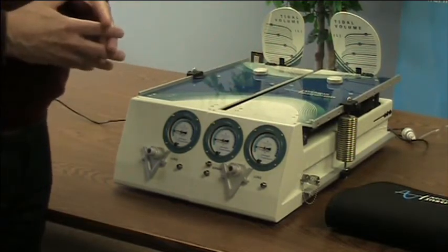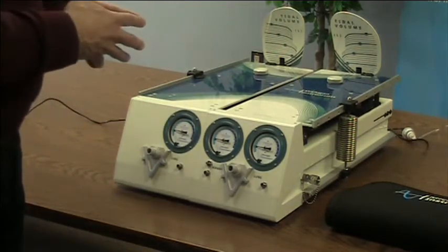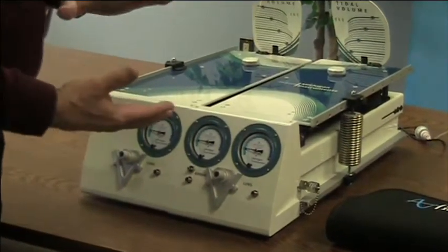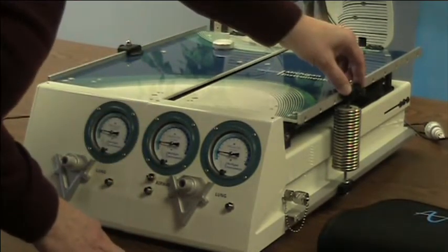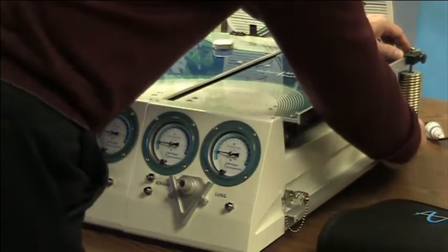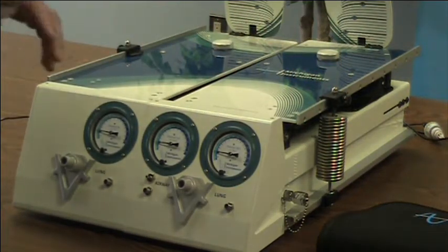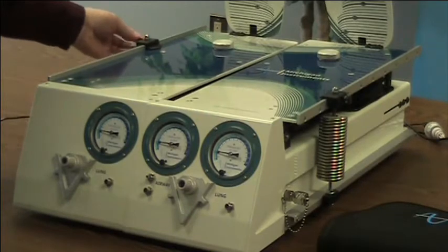What we simulate with the TTL — let's cover that first. We're simulating a typical adult lung volume, and each lung has an expandable bellows representing the lung, and that bellows maintains a residual volume that's a typical adult volume. We can adjust the lung compliance on each lung by adjusting the position of the compliance spring, and we can make the lungs very stiff or non-compliant or very compliant, so we can cover a whole range of lung diseases. Each lung is independently adjustable to the position of that compliance spring.